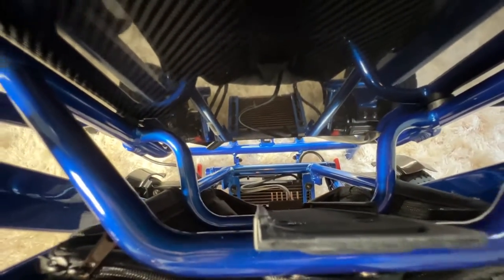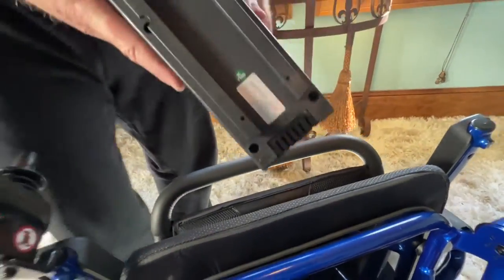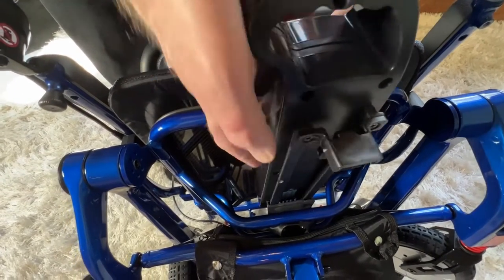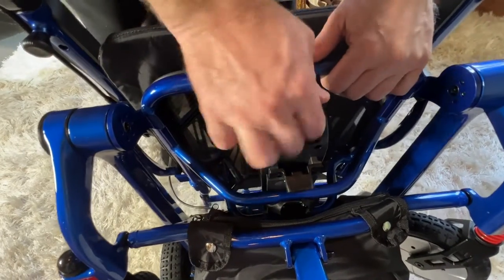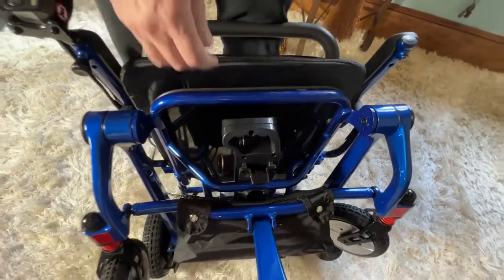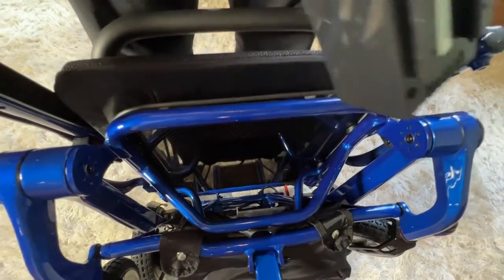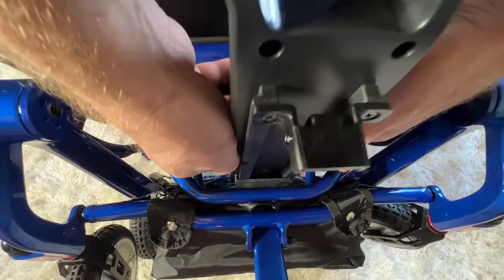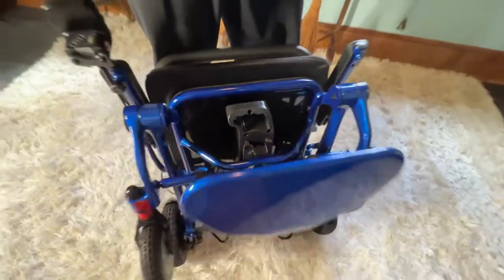Let's take a look at the battery. The battery itself has two tracks — and this was very clever. It lets me slide the battery against the one track and just slide the battery in, then release the little latch and there you go. I'll do it one more time: unlatch it, take the battery out, then very easily slide the track and slide the battery right in. There you go — it's all set to go.